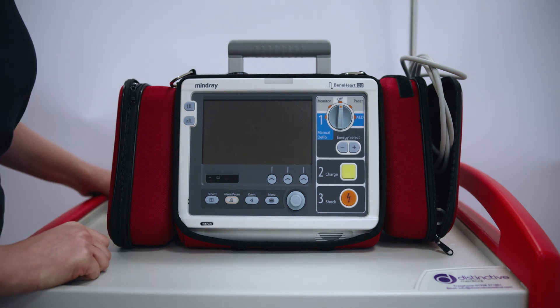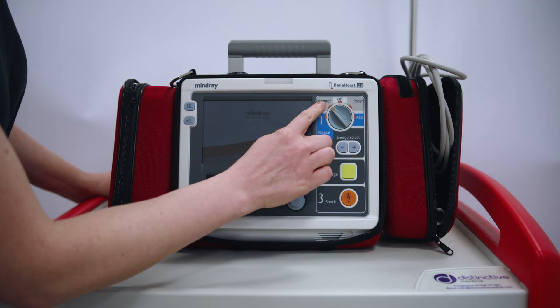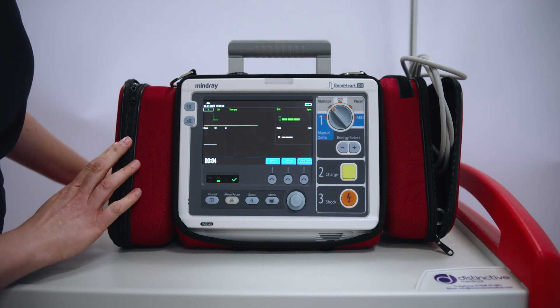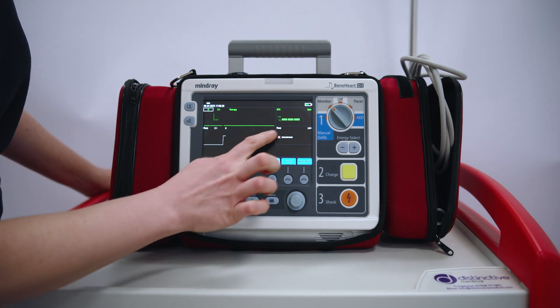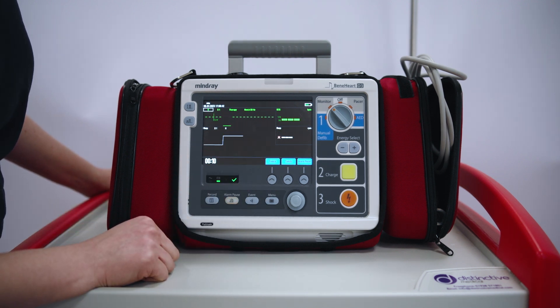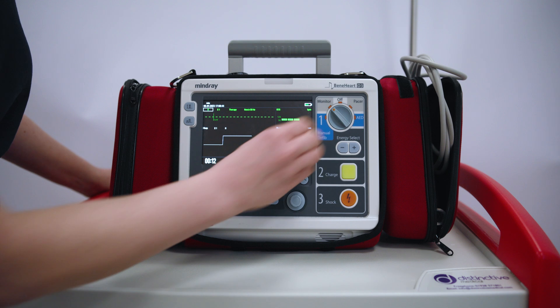To turn it on for patient monitoring, we go to monitor setup. Here we can use the ECG monitoring and you can calculate respiratory rate, heart rate, and you can put a SATS monitor on.